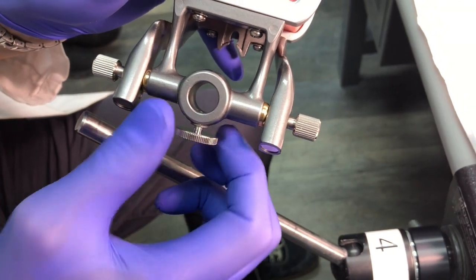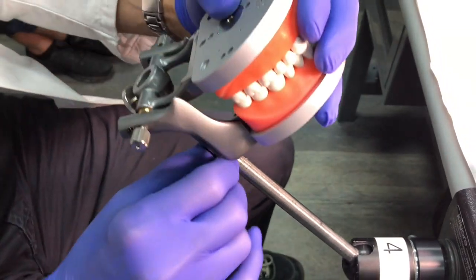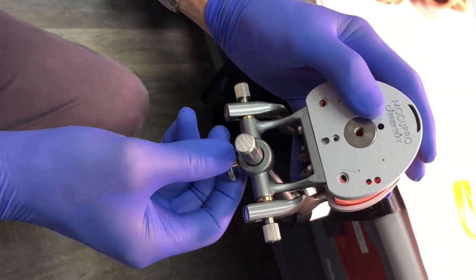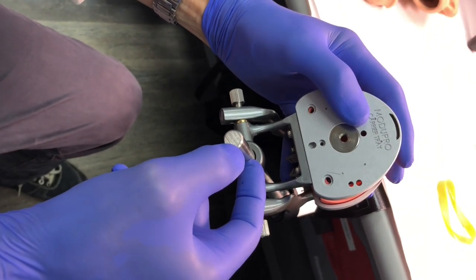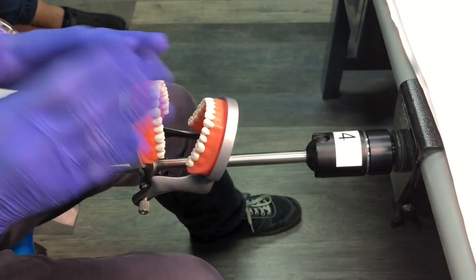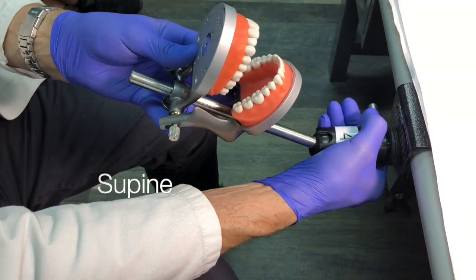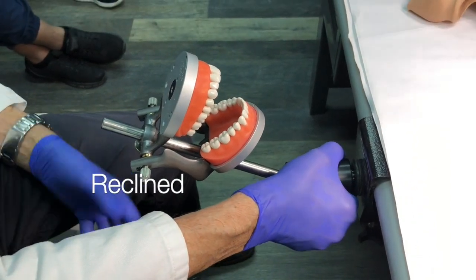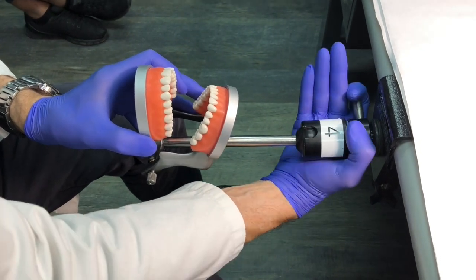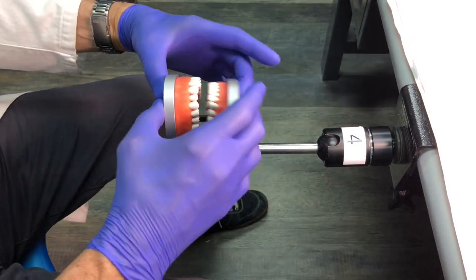You'll notice this little lock ring — this is on all your typodonts. What you're going to do is put this lock ring inside the hole, find the flat spot, move it down about two inches from the top, and then tighten it. When the patient is like this, that's called supine; and this position is called reclined. That loosen-and-tighten movement is all you need — just keep an eye on where that little notch is.